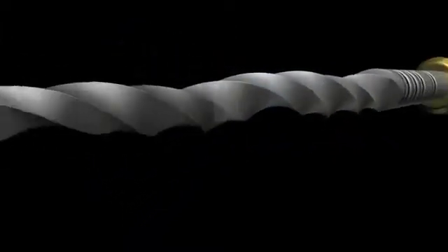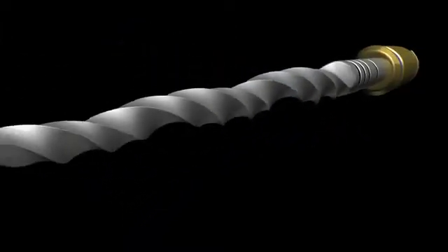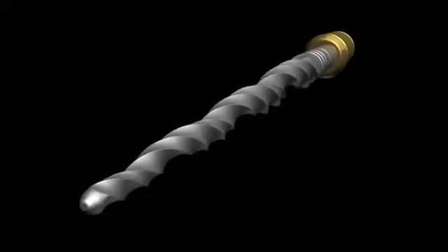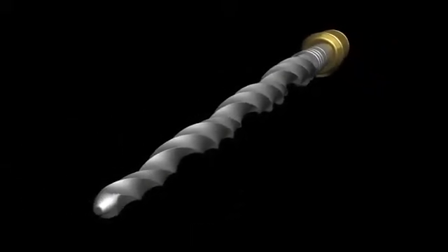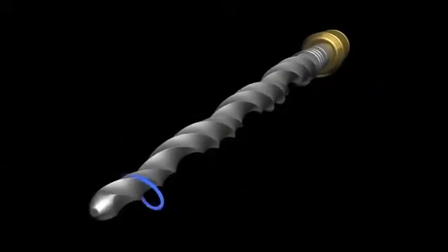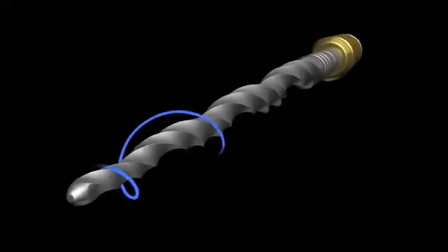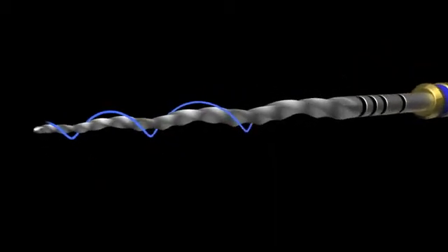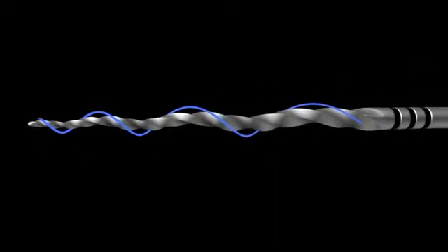As we pull away from the file, something extraordinary begins to reveal itself. Here you can see another aspect of the special design of the ProTaper Next instruments. Next provides a unique asymmetrical rotary motion.